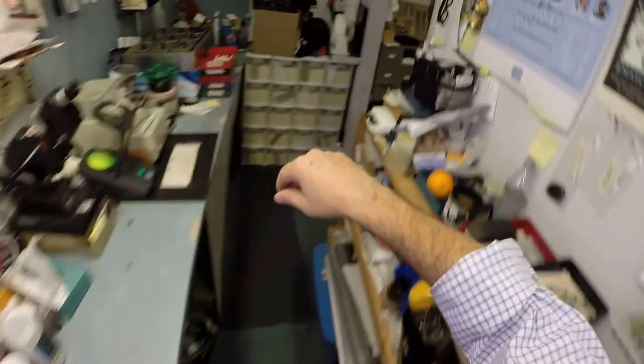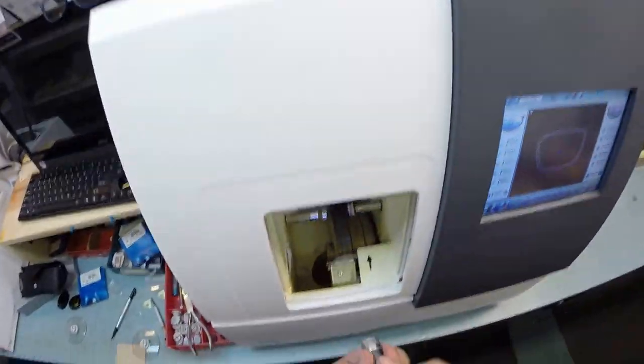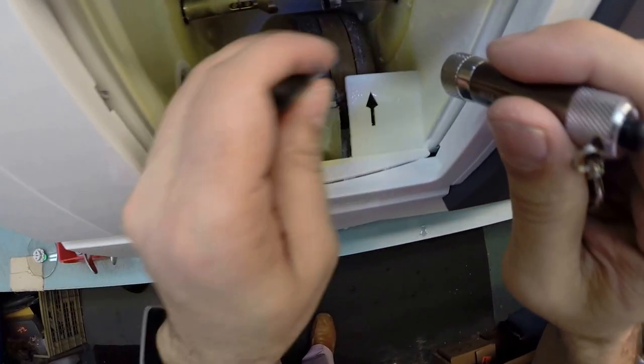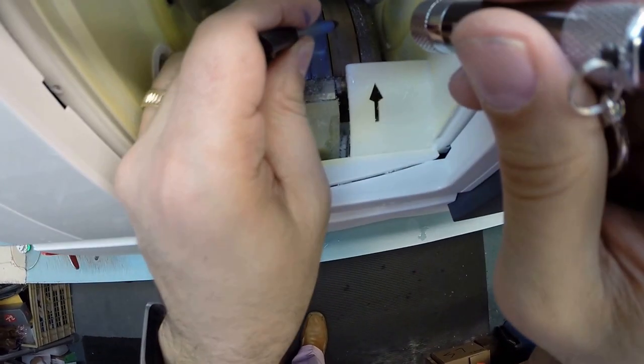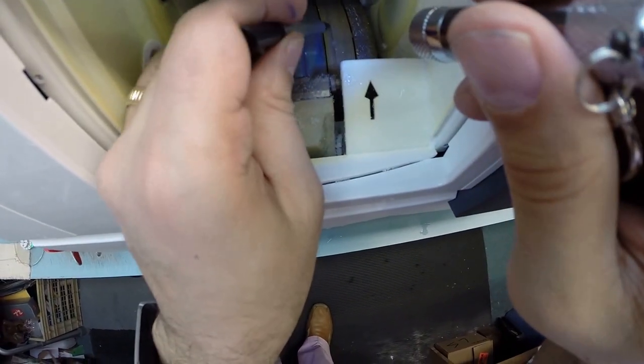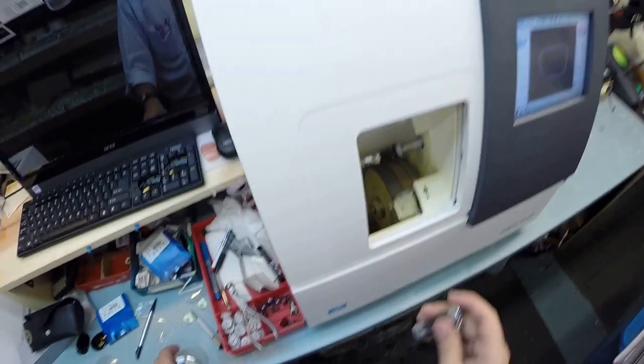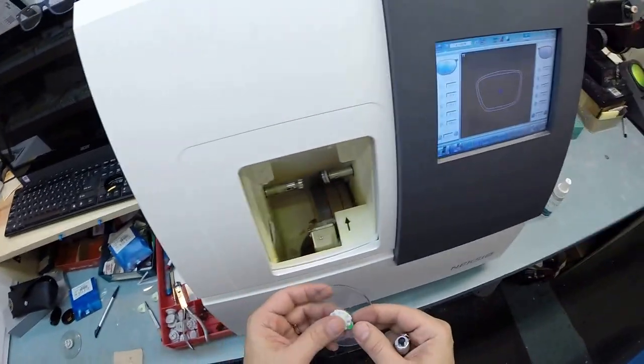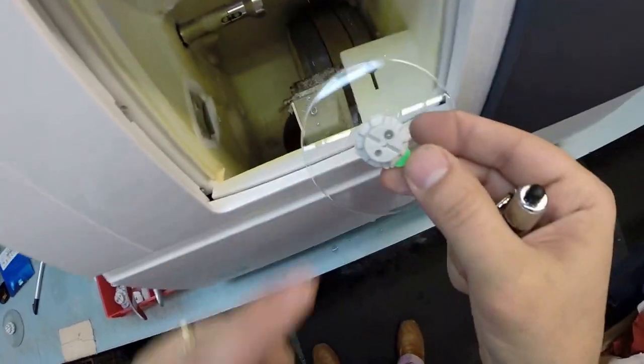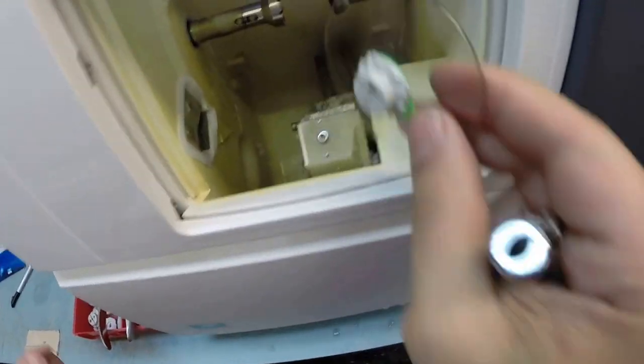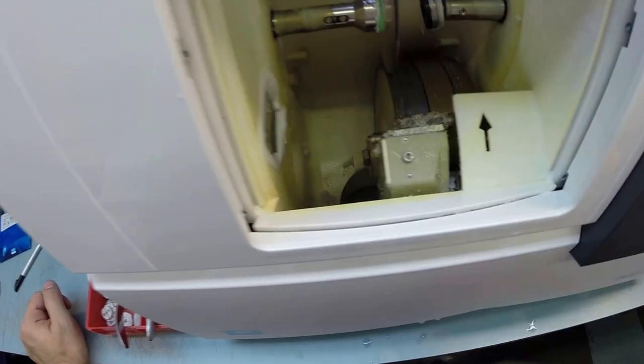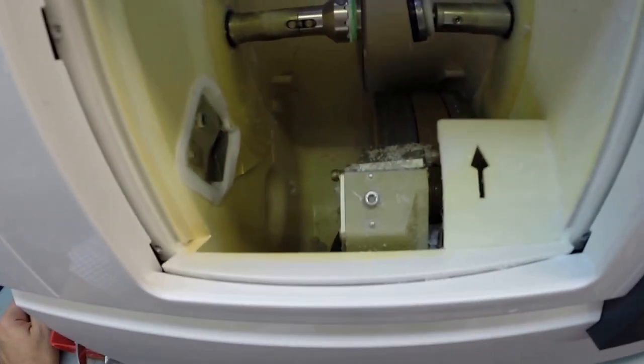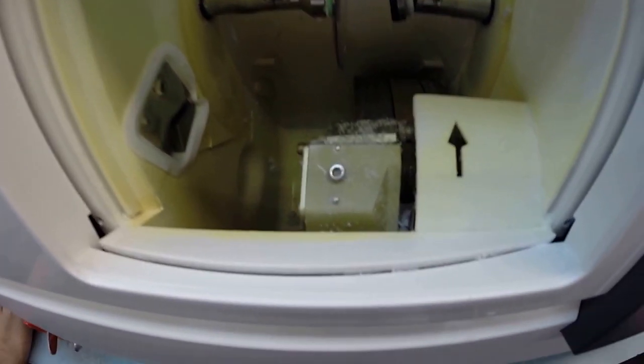Hang on, I'm missing something here. Let me get my flashlight. The actual cutting wheel is in here on the far right hand side. It's going to act like a heavy grit sandpaper to grind away your lens material. This wheel in the center with that channel, that valley, that's what's going to put the bevel onto the lens so it stays inside the bevel of the frame. I'm going to place that magnet again the second time. It's going to hold it in place in the chuck, or as I like to call it the Charles, because I don't know the machine well enough to call it chuck.